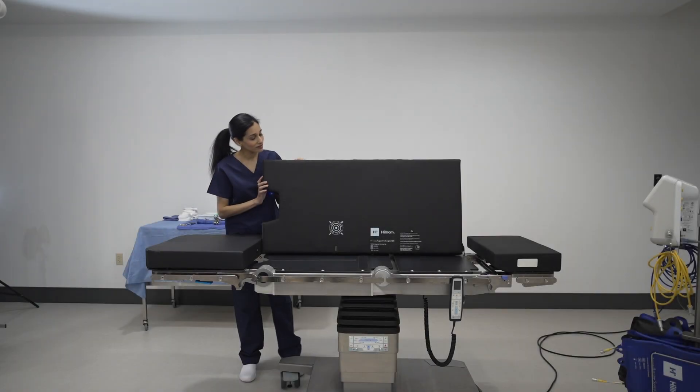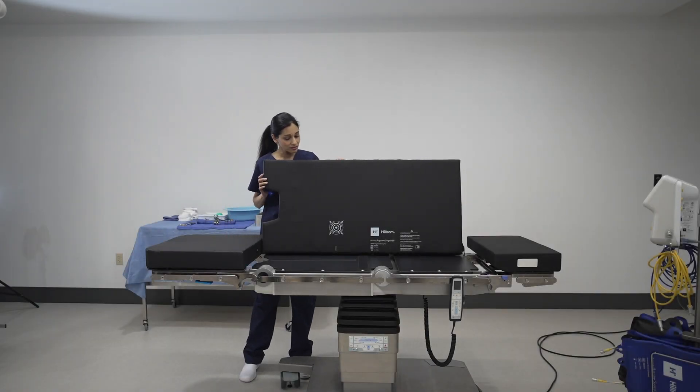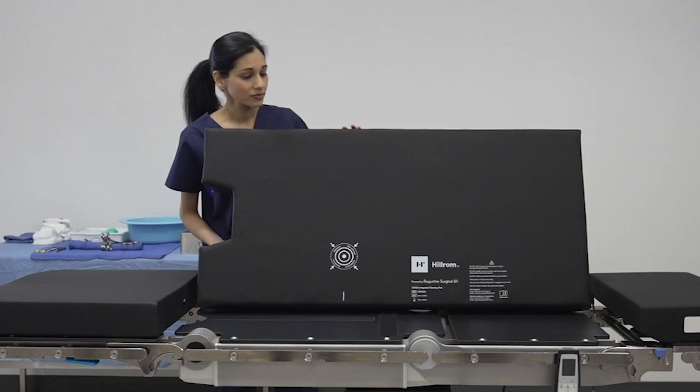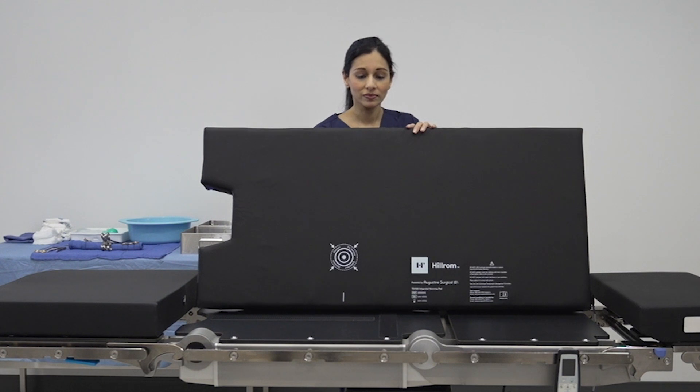The patient warming system has two different patient warming OR table pads. One version is for the PST-500 surgical table, while the other is for TS-7000 and TS-7000-DV surgical table series.